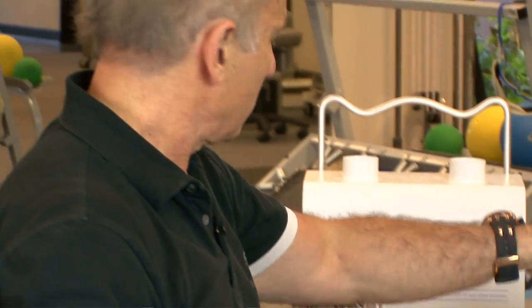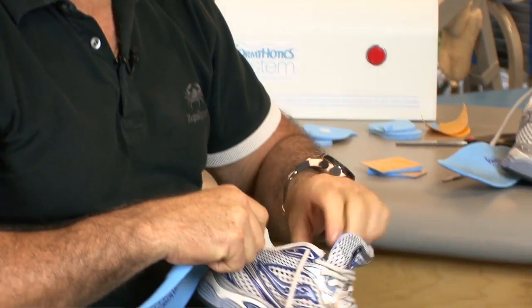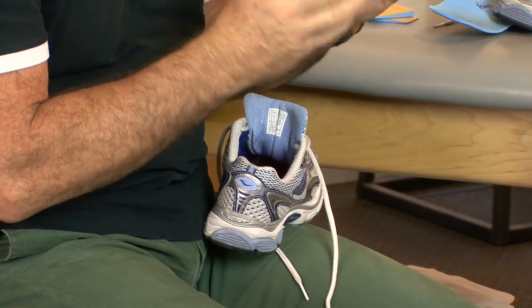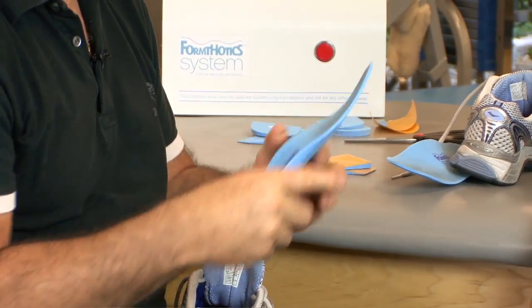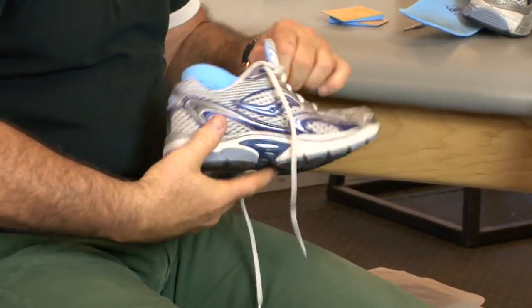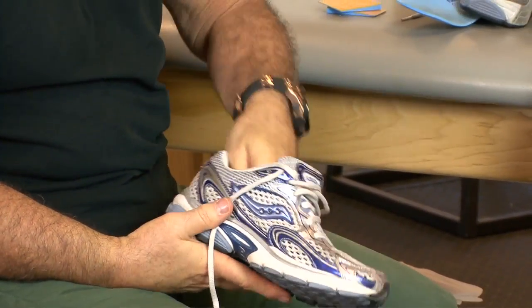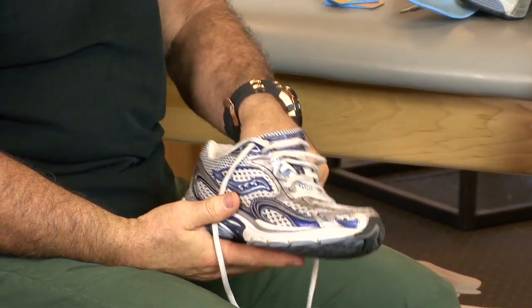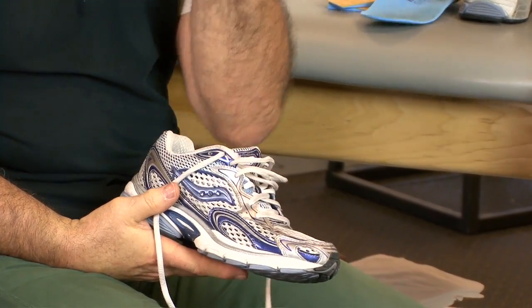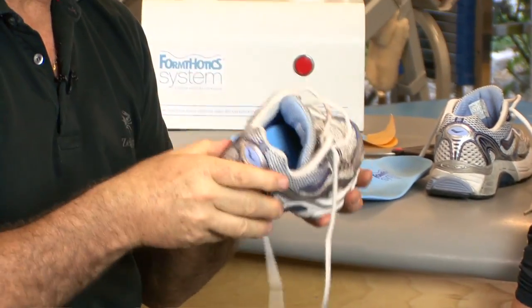We'll put them in the shoes. Remember, you take out the inner sole — that's your mold, your pattern. You cut the orthotic to match the inner sole, not to the foot, because the inner sole is the full length of the shoe and the orthotic needs to be full-length so it doesn't slip as she runs or walks. It's almost like dentures — molded right to the foot, they don't move. That's what you want.